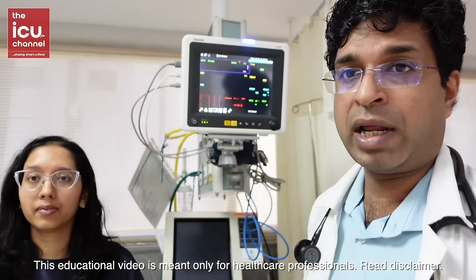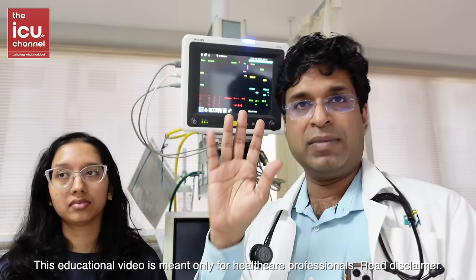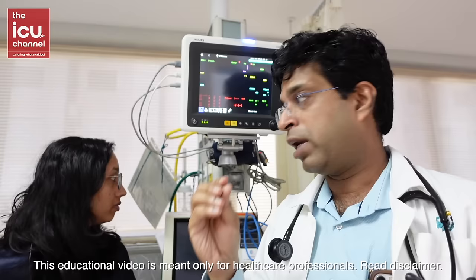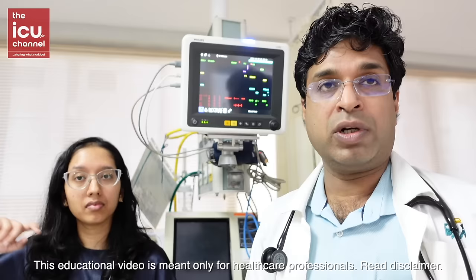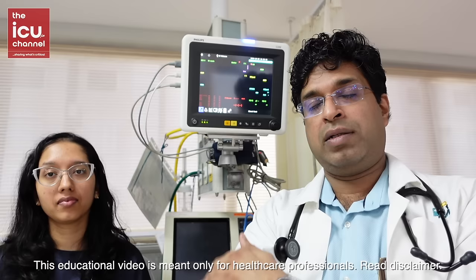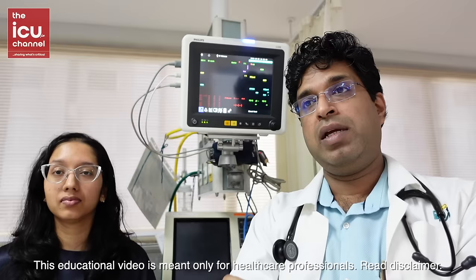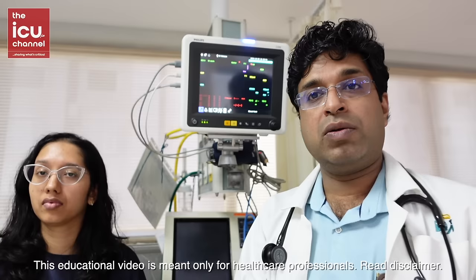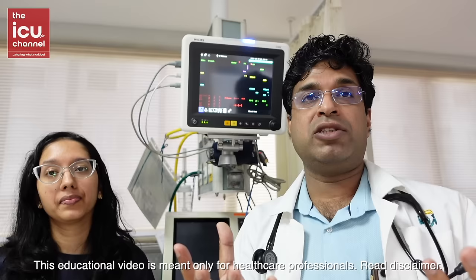The first and foremost thing on the monitor is rhythm. Second is SPO2 — continuous saturation monitoring with a plethysmograph showing the oxygen status of the patient. Then you have NIBP — non-invasive blood pressure monitoring using a BP cuff on the patient's hand. You can set the inflation interval — every 5, 15, 30, or 60 minutes. Be aware that the displayed blood pressure reflects the last recorded reading, not the current time.